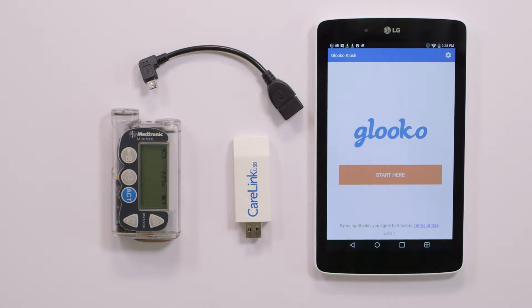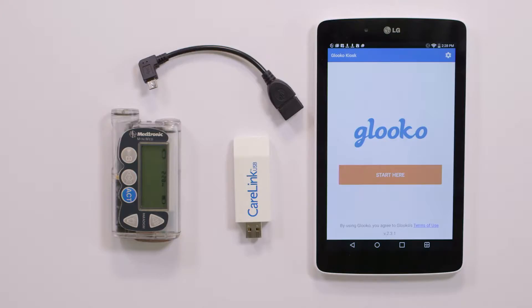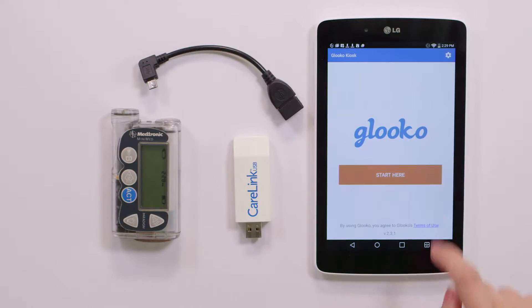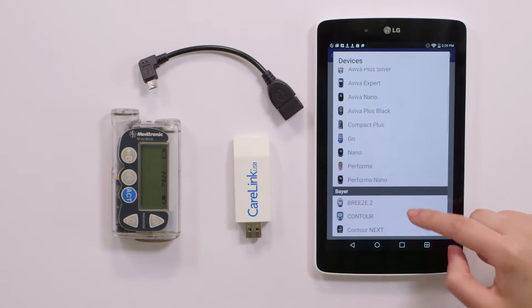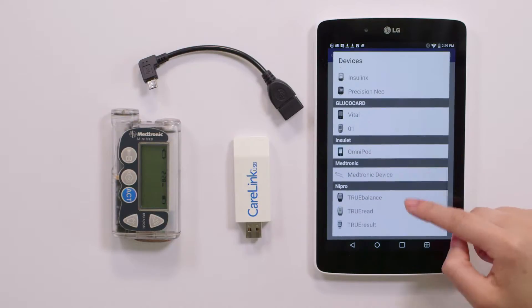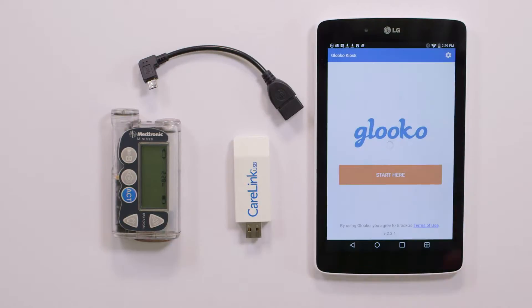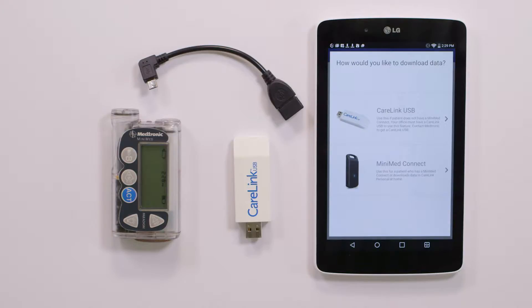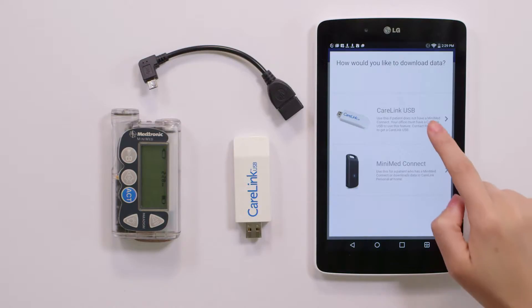From the kiosk home screen, tap Start Here. You'll find our list of supported diabetes devices. Scroll until you see Medtronic, then tap Medtronic to open the Download New Data screen. Tap CareLink USB.